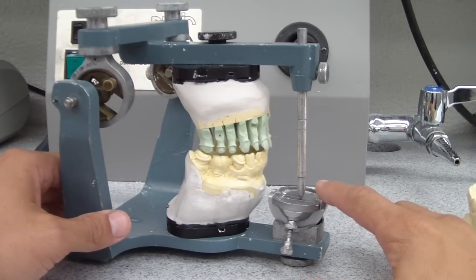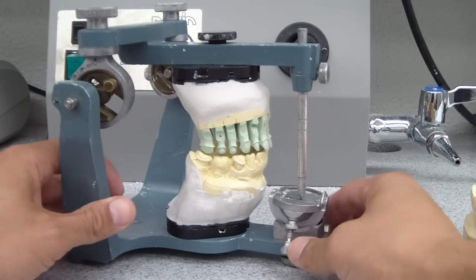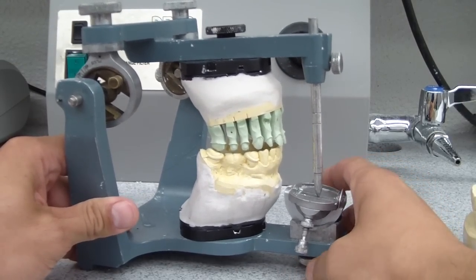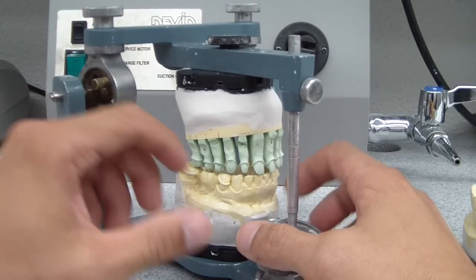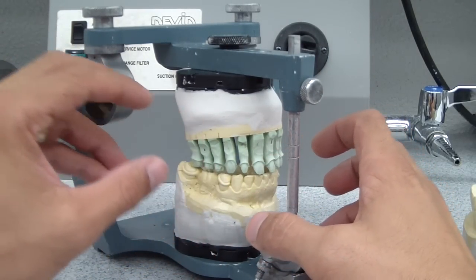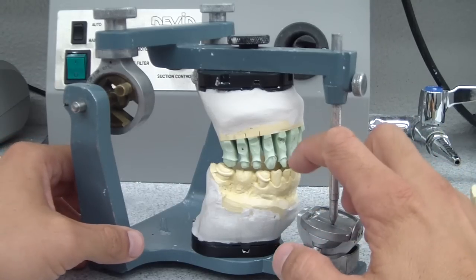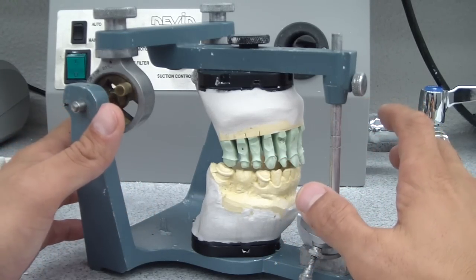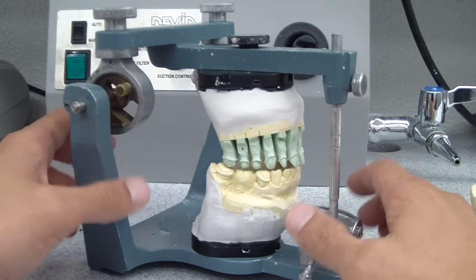So we can use a mechanical — we're talking about this thing right here — and this is a mechanical, as you can tell, it's loosened. Really, when you have a case like this, where you've prepared the teeth and you don't know where your guidance is, your excursive patterns, whether you want like an anterior guidance or a canine guidance or a group function.